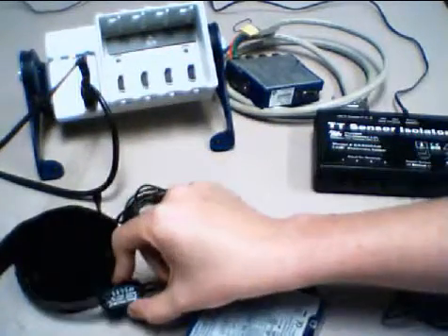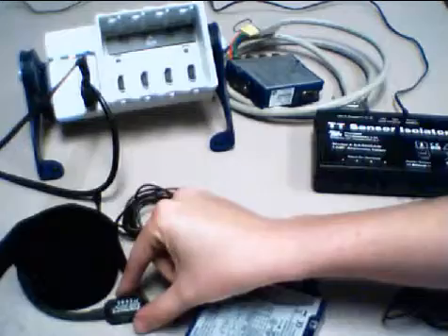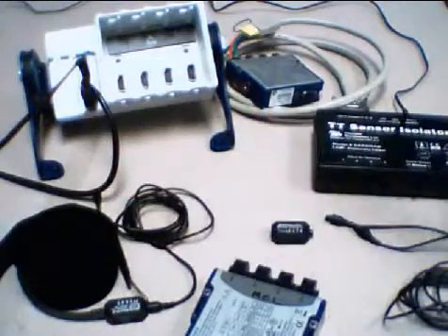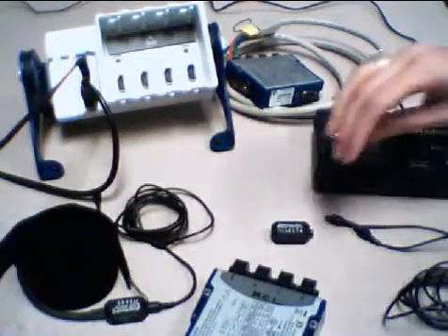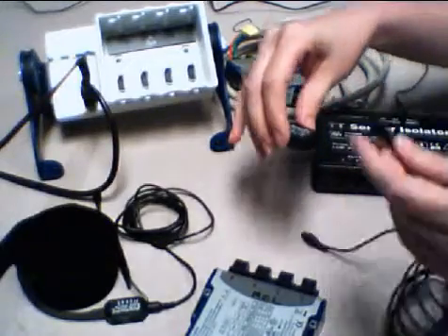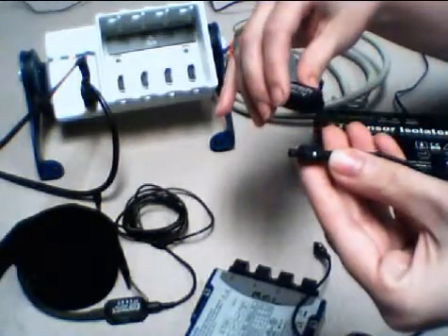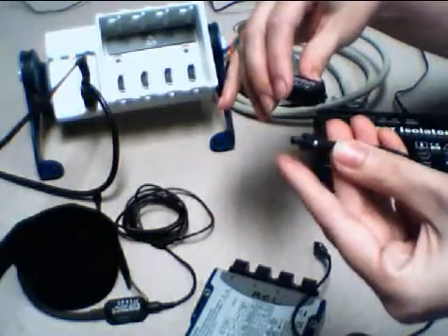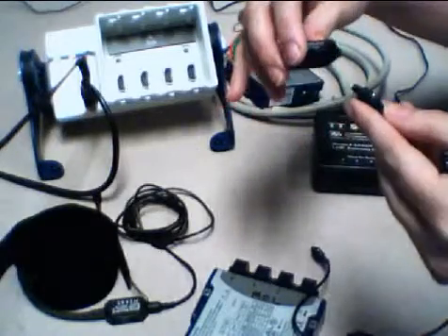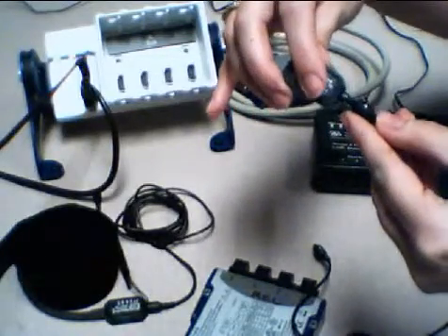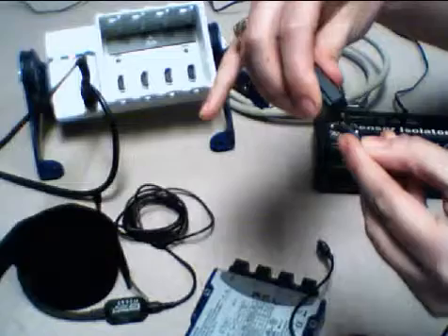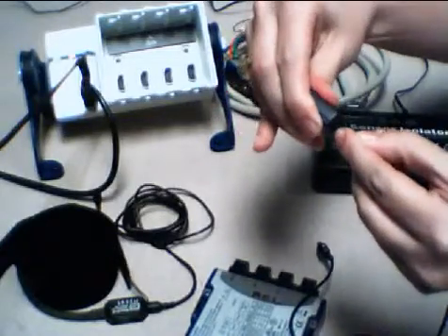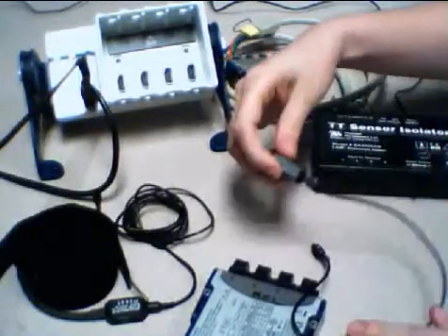We strap this around the chest or the abdomen and it will convert the expansion and contraction of the belt. This stretch sensitive element will generate a voltage that will rise and fall. Now to actually connect these sensors, Thought Technology has a cable with an interface here. You'll notice there is a white dot letting us know how to align our sensor. I can insert the cable into my sensor and we're good to go.